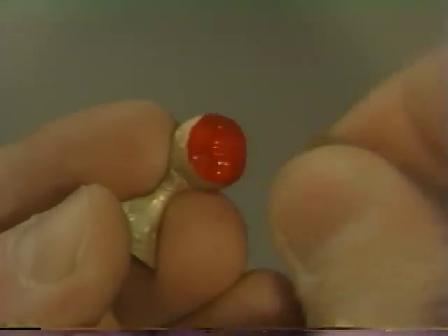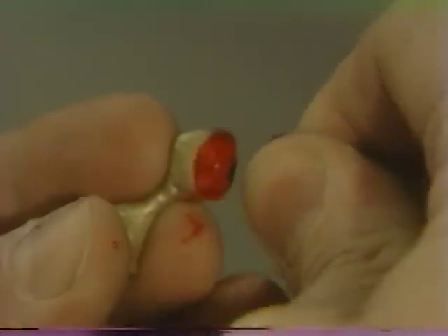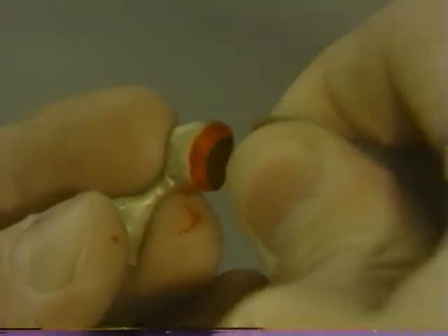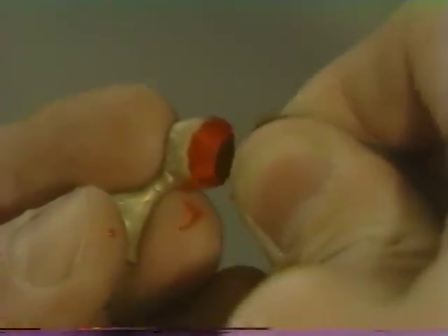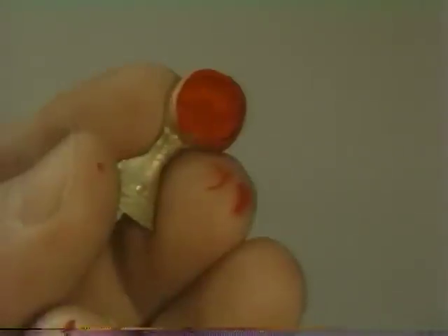The internal surface is coated and the marking agent is immediately blown into a thin layer so as not to interfere with seating. The marking agent should be dry before the crown is re-seated on the die.